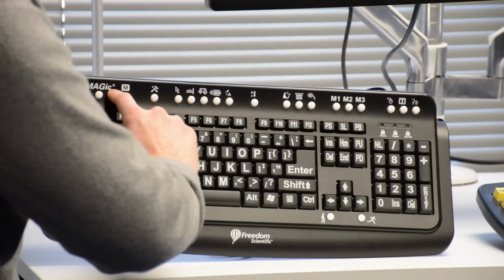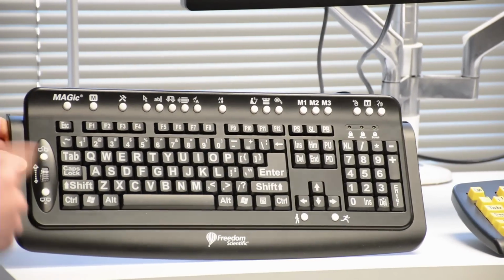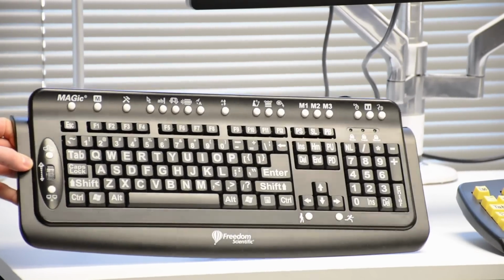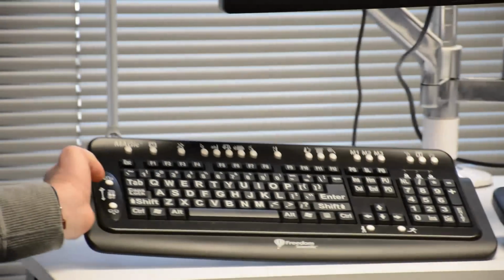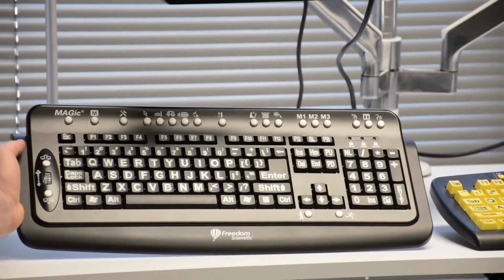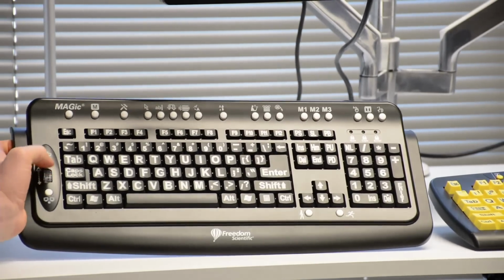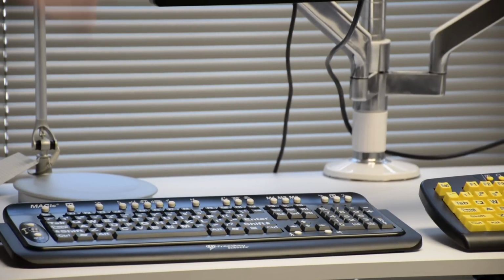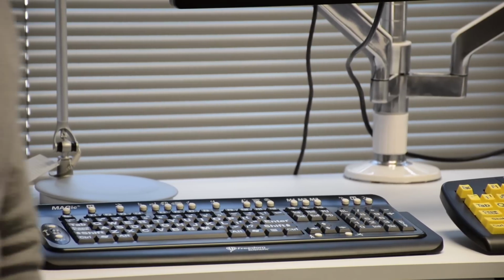They both have the shortcuts that go with their software. They can launch right into the options for the cursor and the text for you as well. The ZoomText one has buttons so you can change the magnification. And Magic has a scroll wheel on the side so you can scroll in and change the magnification on the fly as well.